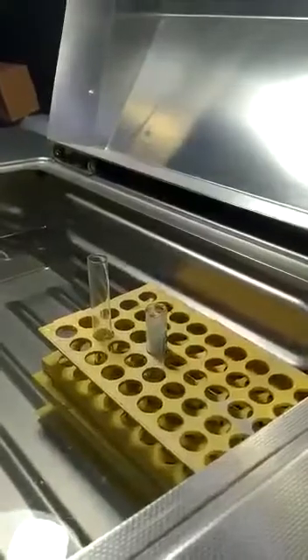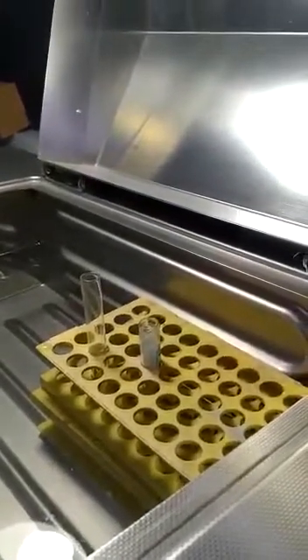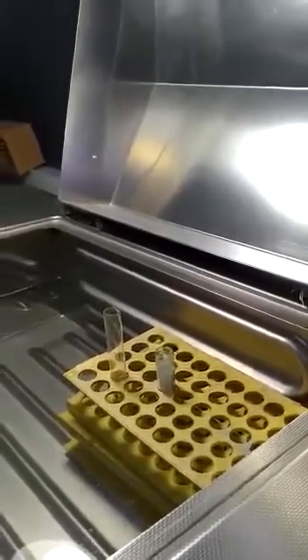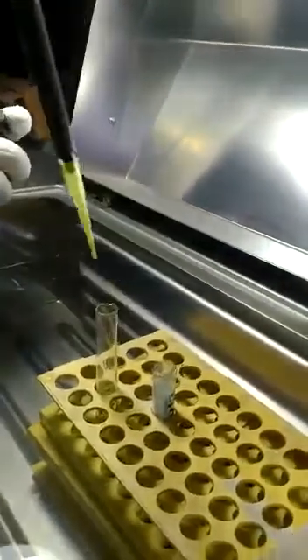This is the calcium chloride. We will take 100 microliters of the calcium chloride and put it in the tube, in which we have 100 microliters of the aPTT sample. This time 2 minutes is over. Now we are going to add calcium chloride for activation of the clot formation. Now he pours the 100 microliters of calcium chloride and starts the stopwatch.